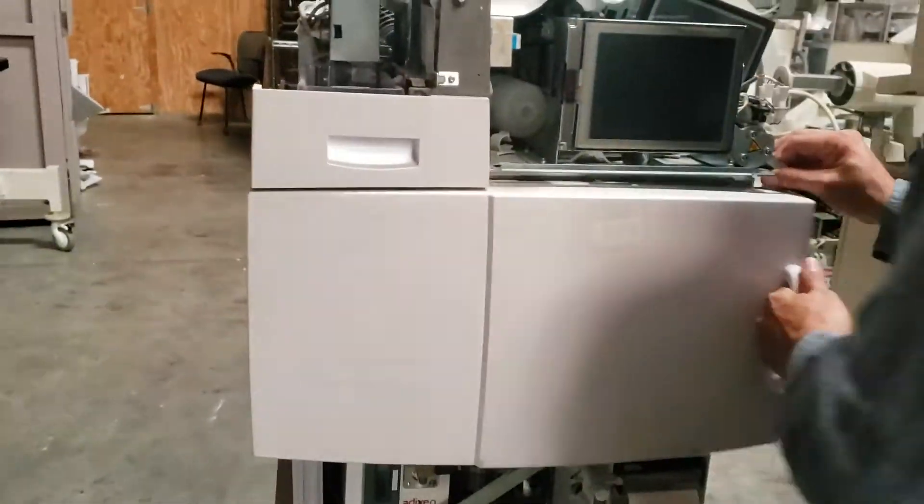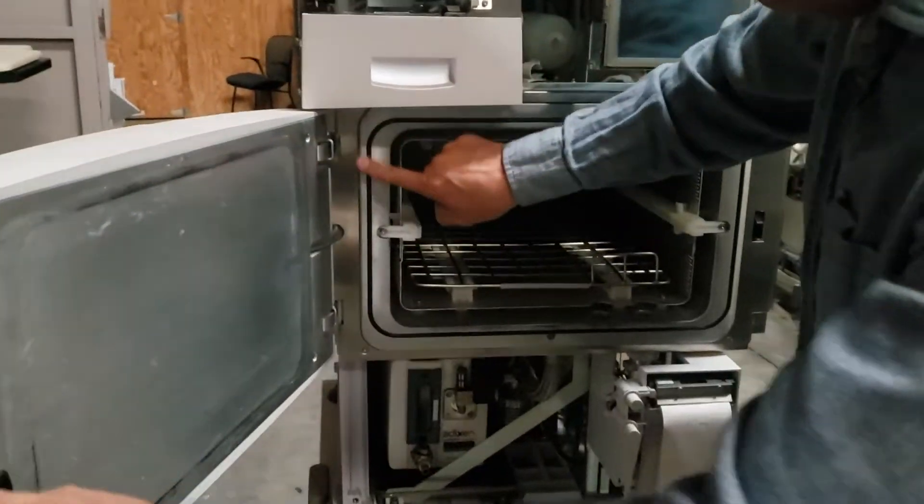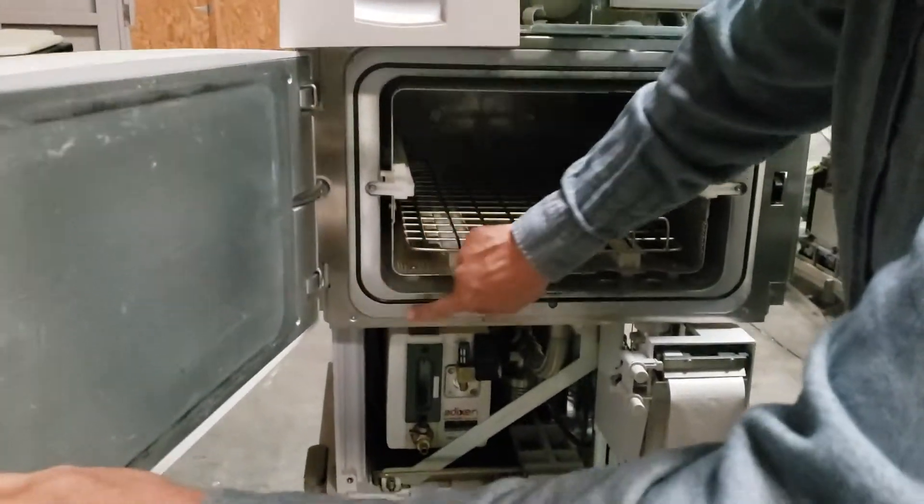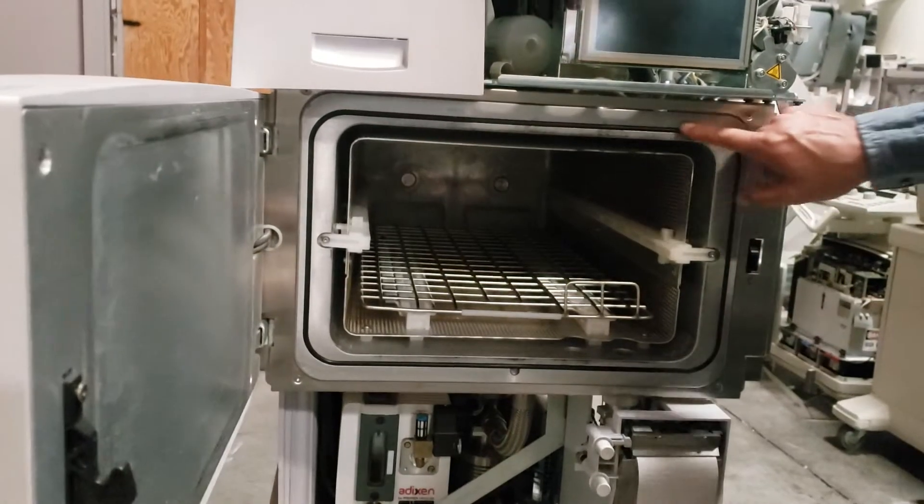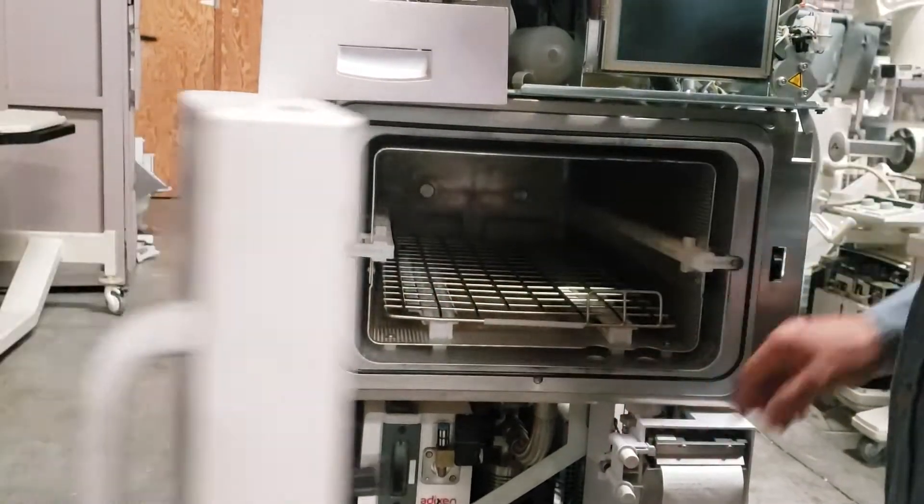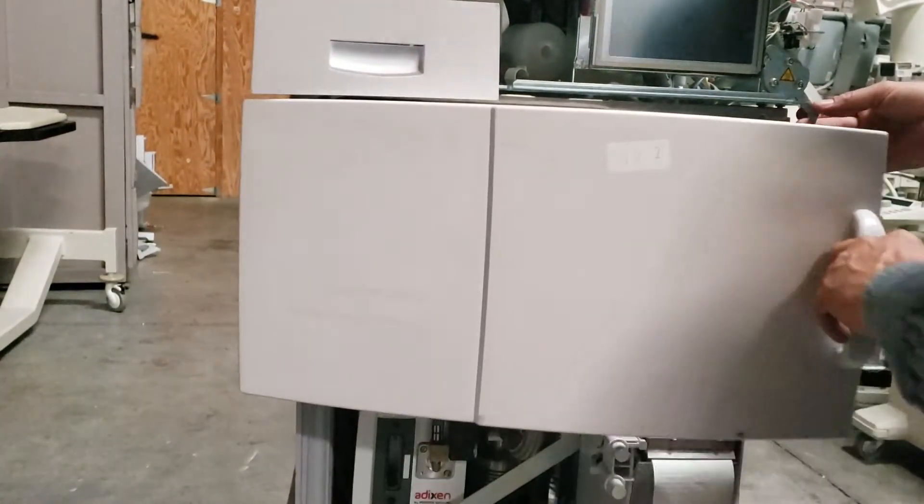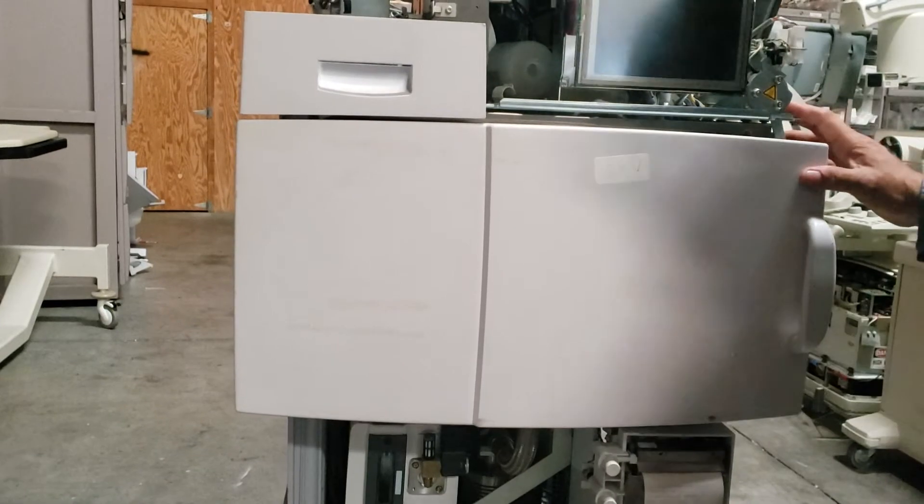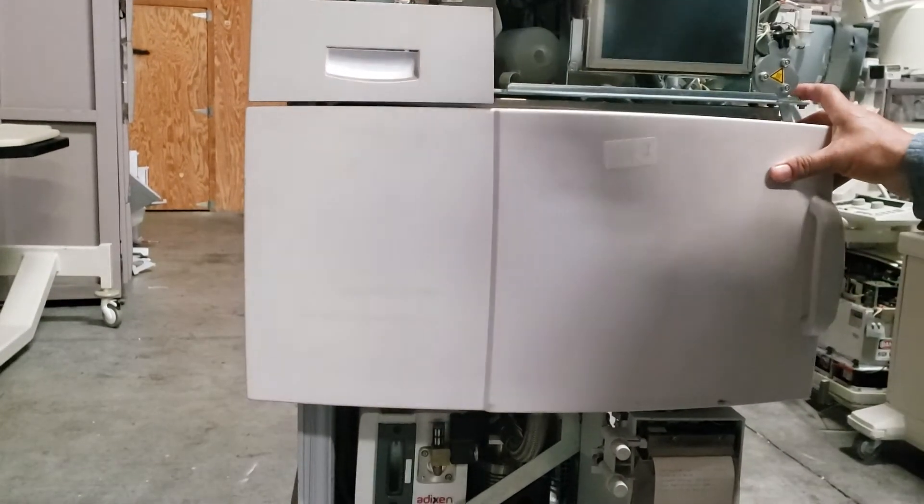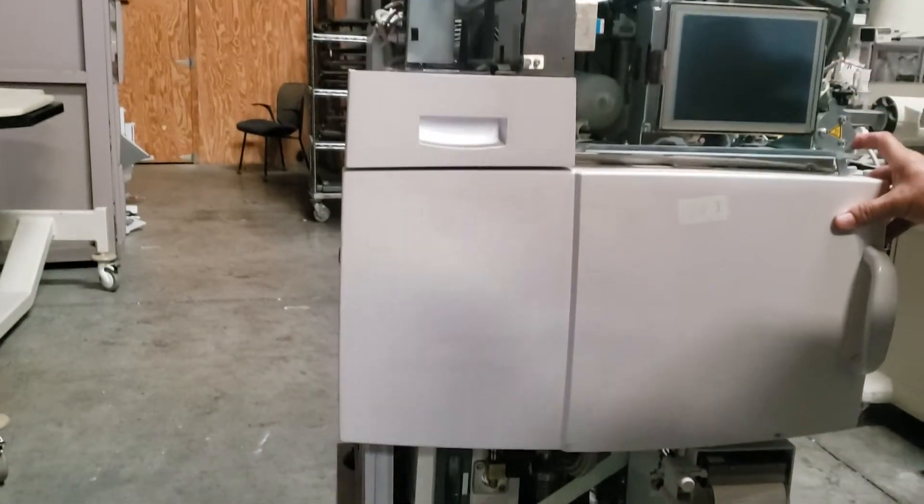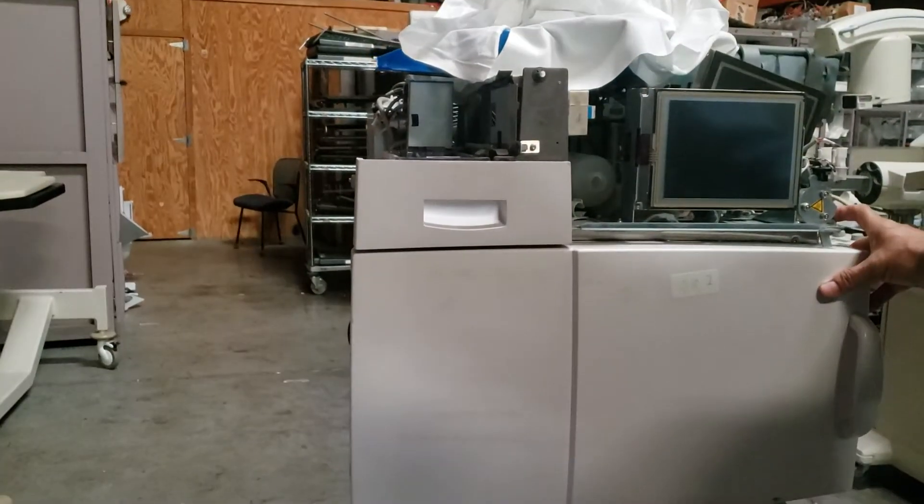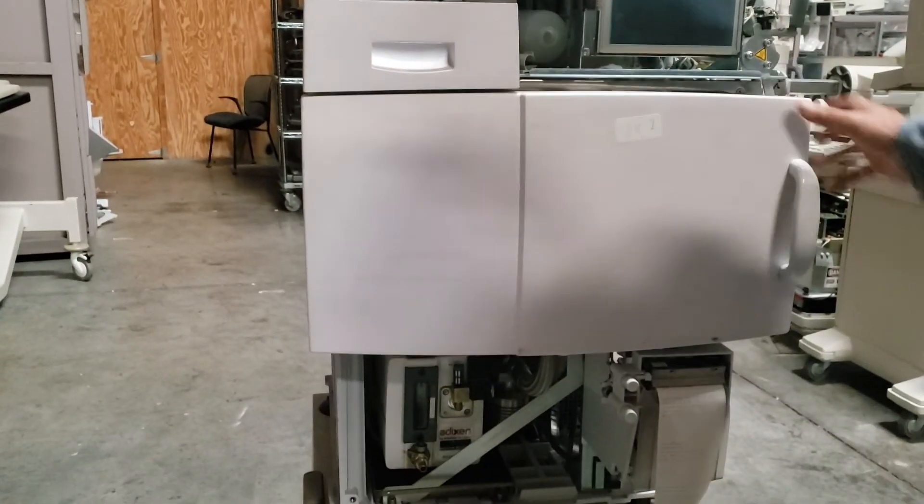Also be sure that the door is closing okay, this big opening. And that is the most important thing you need to check for the leak. When you check the leak, please come back.